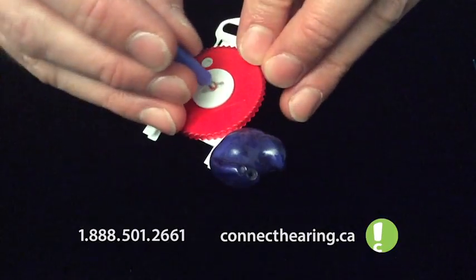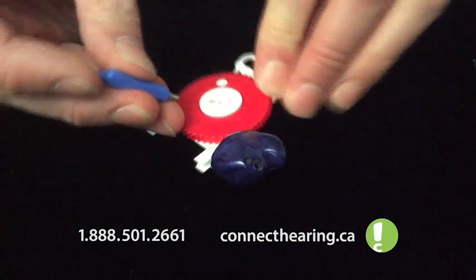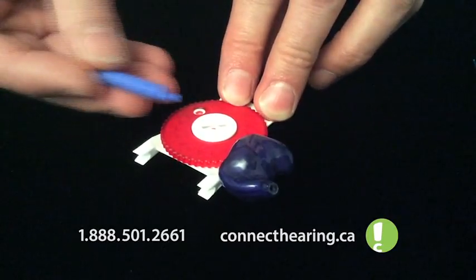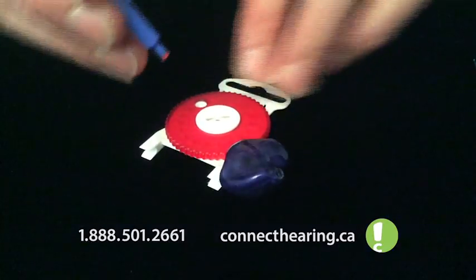In the tool kit, there's a little spot you can slide it there, pull it in, and just pull it off. As you rotate the dial, it exposes the replacement. So you take the other side that doesn't have the metal, push straight in, it clicks in.